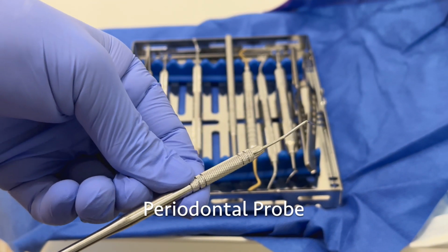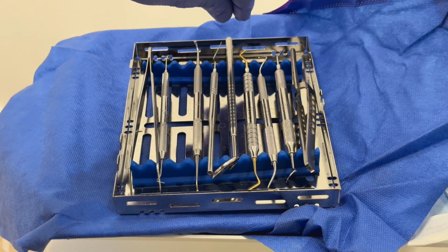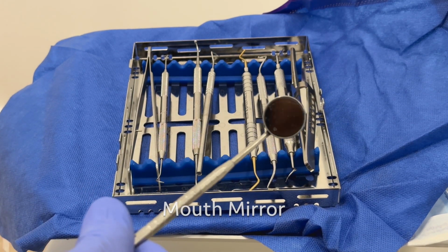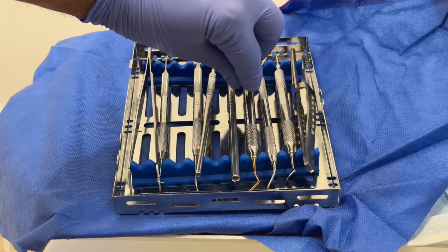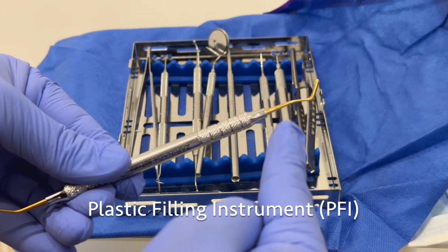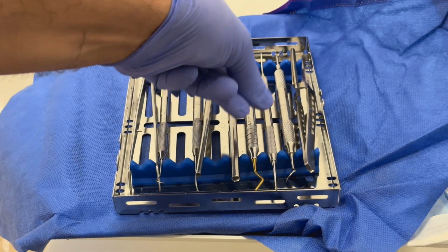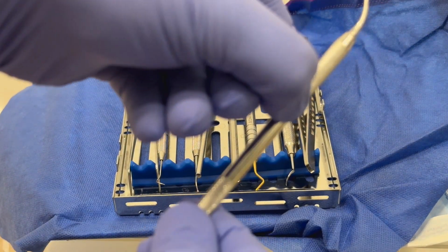Up next, we have our periodontal probe. This could be for anything from measuring pocket depths to even helping place composite resin. A mouth mirror will always be used in every restoration, pretty much every procedure at the dental office, for indirect vision as well as light reflection. A PFI or plastic filling instrument is used for placing the composite resin in the cavity prep. This also helps them shape the cavity prep in different increments.